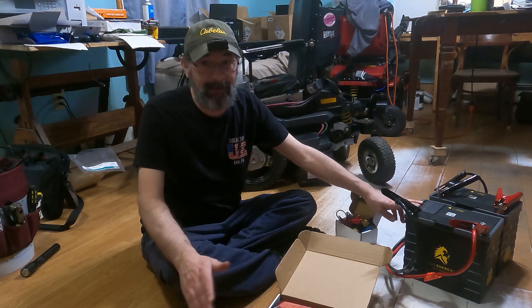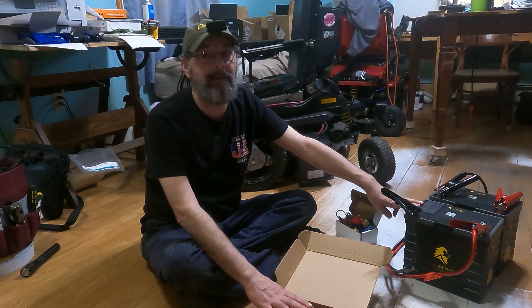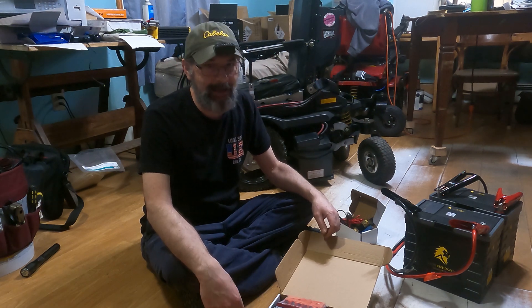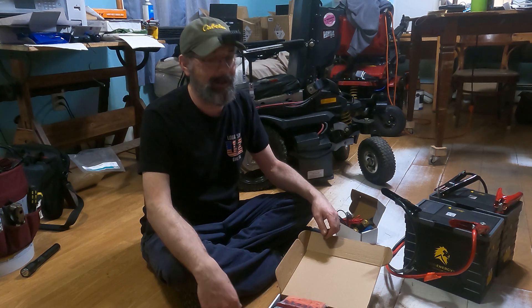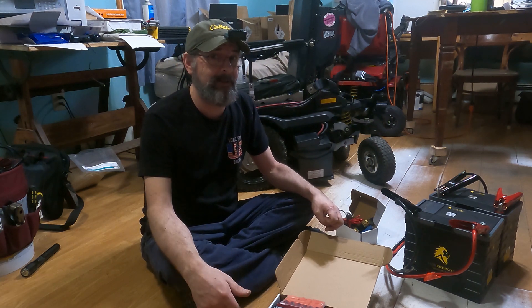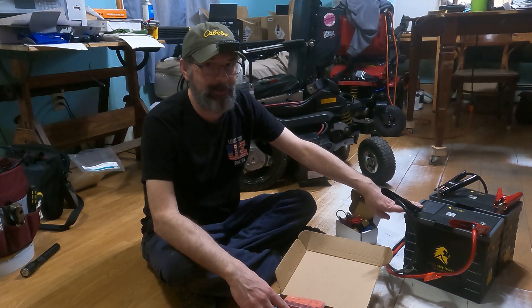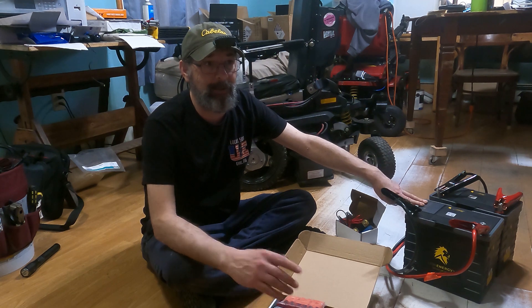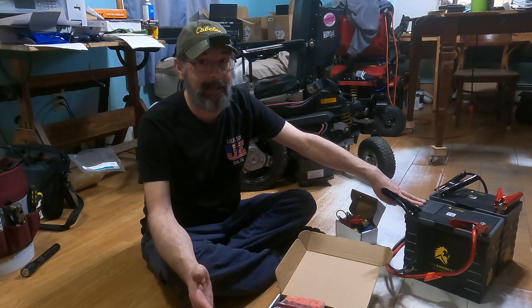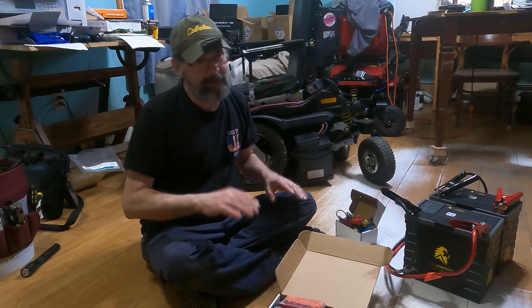This charger is capable of charging these batteries in under six hours from completely flat to full capacity. Being able to charge from dead to full in less than six hours is because this is a 20-amp charger — most wheelchair chargers are 8 amps or less. It's simple math: 105 amp hours at 20 amps per hour means you need just over five hours. But as you get closer to full charge, charging slows down because you aren't putting a full 20 amps in the whole time.